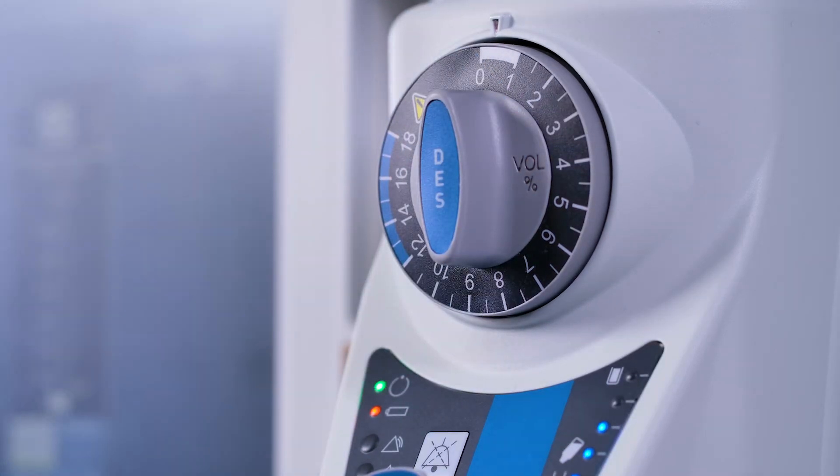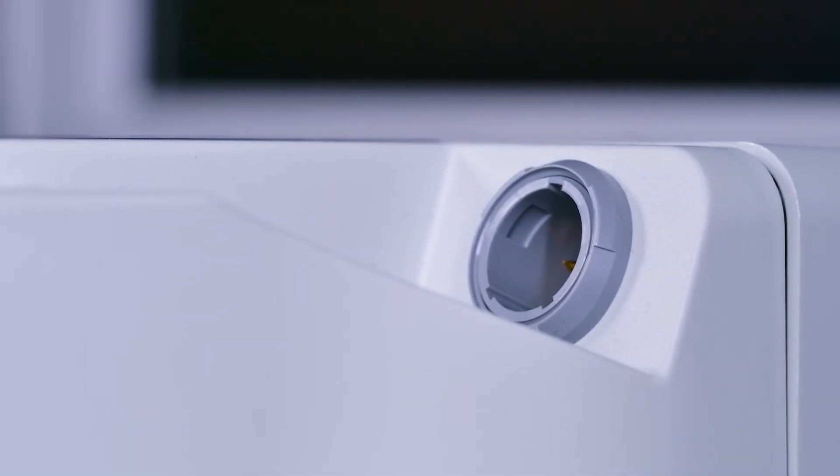Automatic Progression to Standby Mode. Once the warm-up cycle is complete, the power supply indicator is illuminated continuously to confirm standby mode. When disconnecting the electrical power, wait at least 30 seconds for the unit to fully power down before reconnecting.